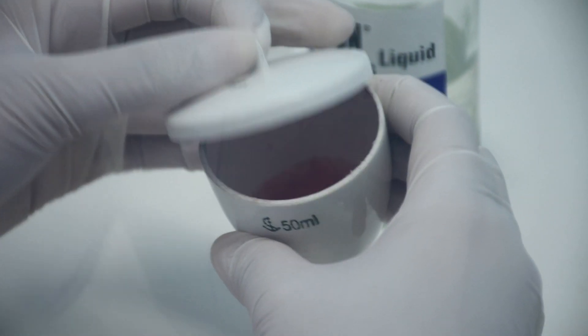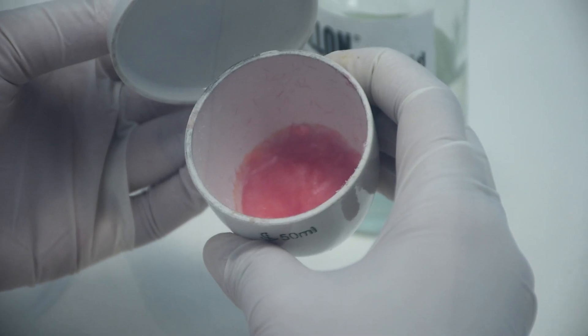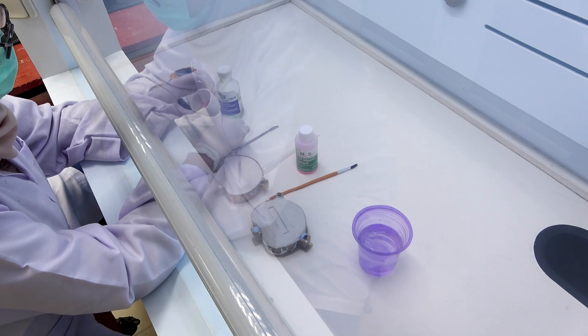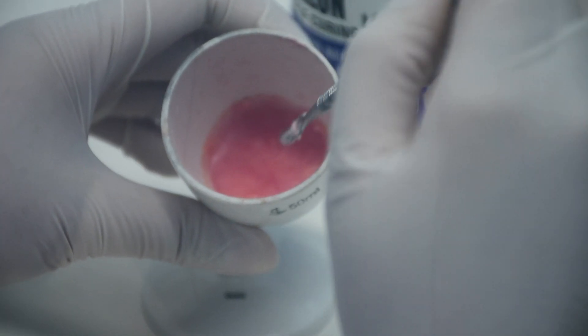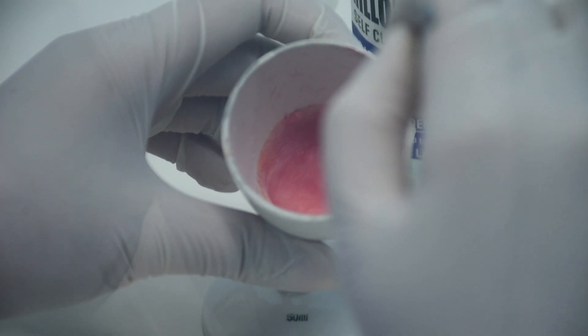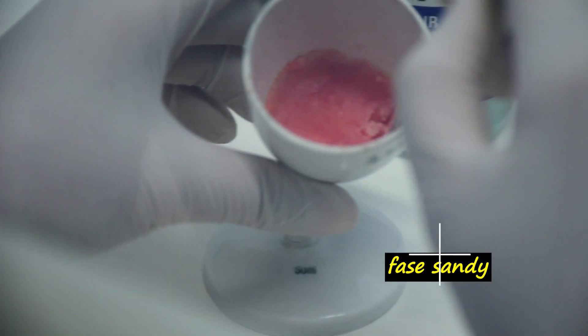Observe the sandy phase, sticky phase, and dough phase by opening the dappen dish lid and record the time when dough phase is reached.